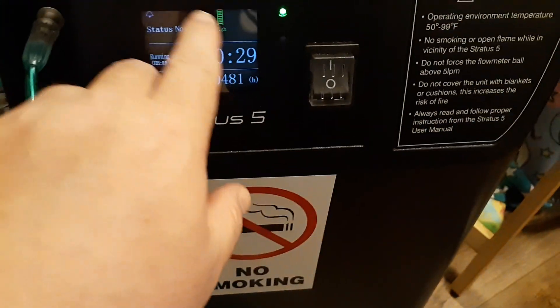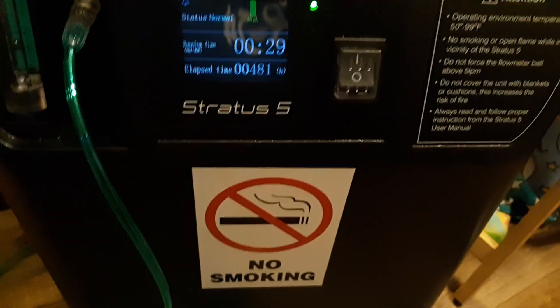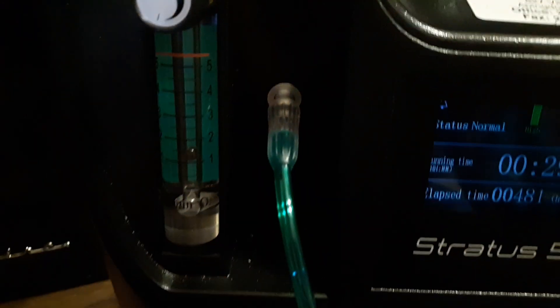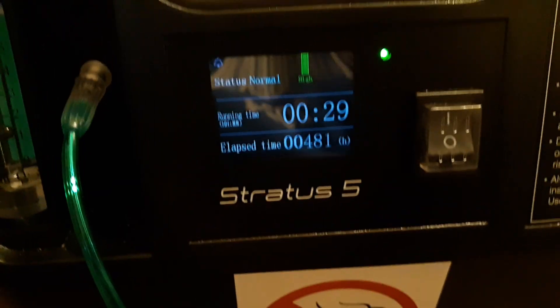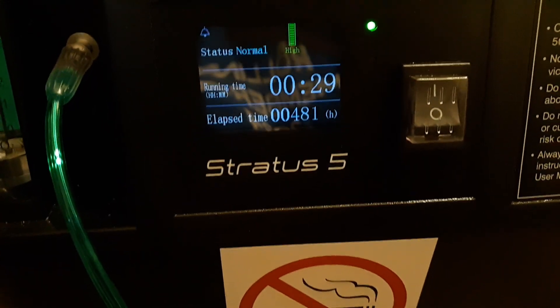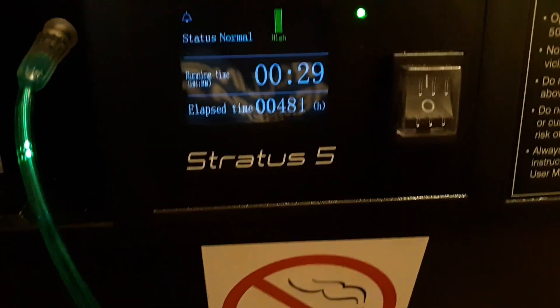Green is normal. If it gets lower than that it's becoming abnormal and you might need to do a couple of things. Right now the patient is on one liter of oxygen; this can go up to five liters. If it's red and says low, it'll usually start beeping.